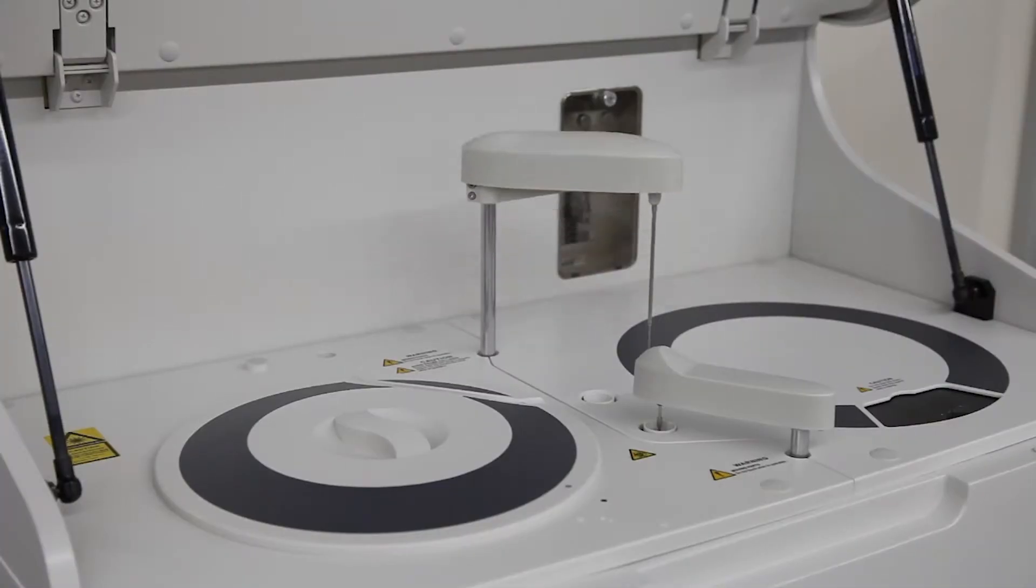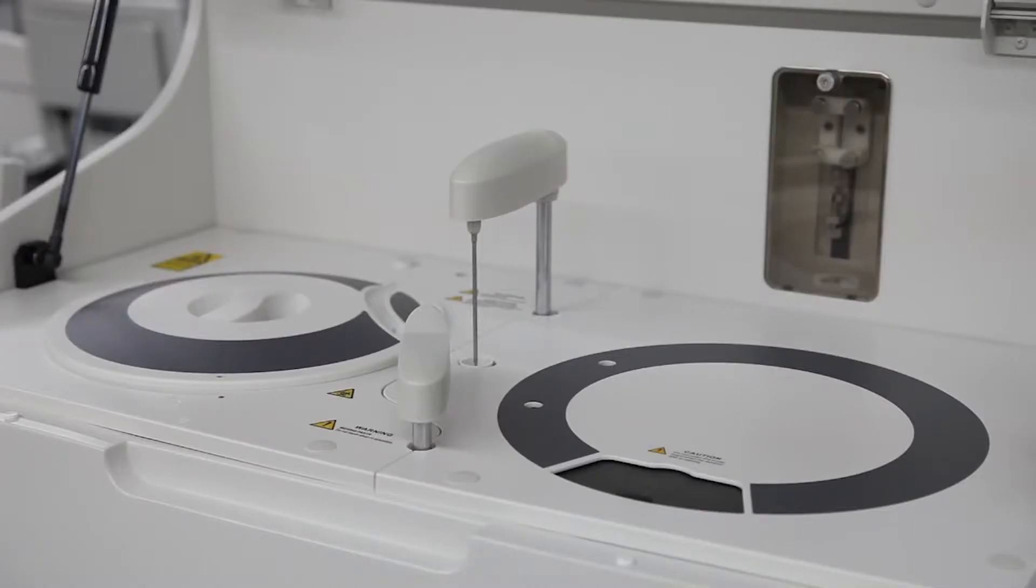This elite, random-access benchtop analyzer serves as the workhorse in today's physician's office and small laboratory.